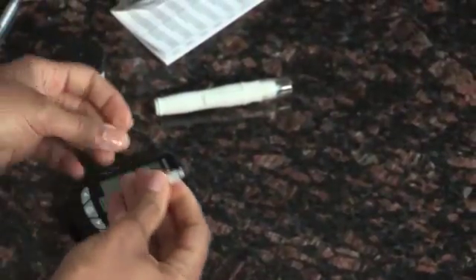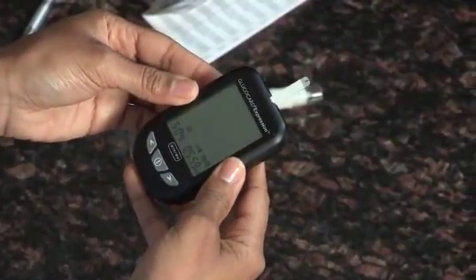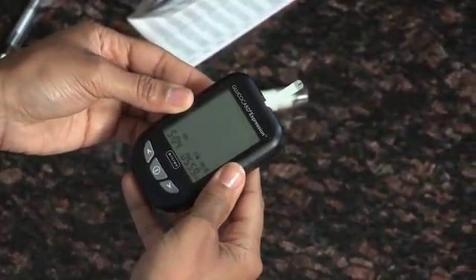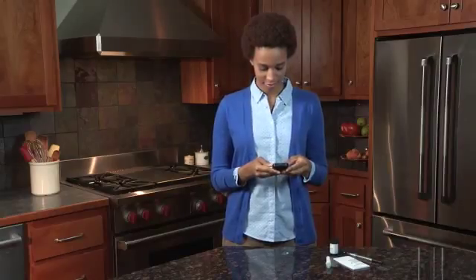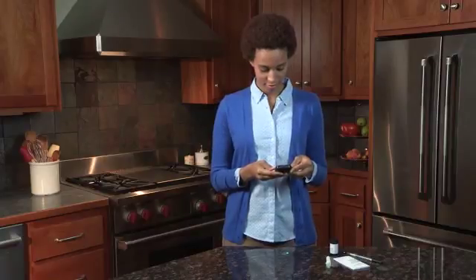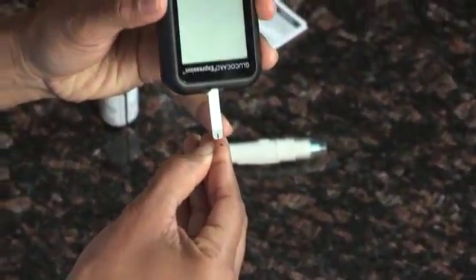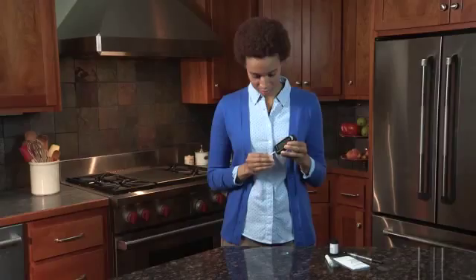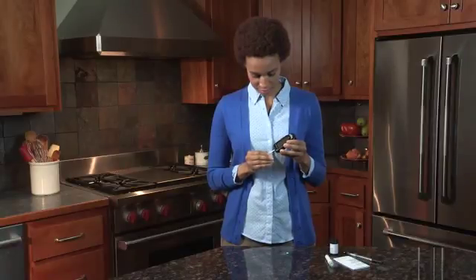To begin, remove a GlucoCard Expression test strip from the test strip bottle. Close the cap immediately and insert the test strip to turn the meter on. A flashing blood drop and arrow icon appears on the meter display screen. The meter will announce 'please apply blood onto the test strip' if you have the voice feature turned on. Next, obtain a blood sample. Gently bring the test strip to the drop of blood at a slight angle.